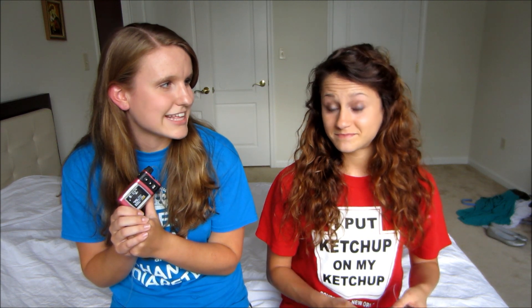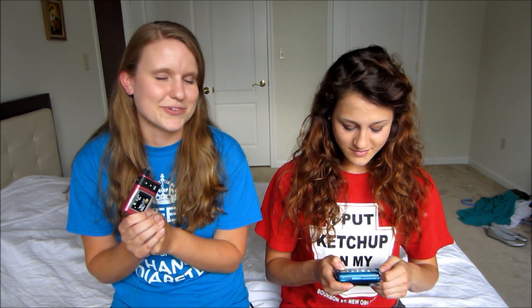Does your pump have IOB? Come again? Insulin on board? It is an insulin pump, it does have insulin. Does it tell you though? Because that's like really important to me. Oh yeah, of course.